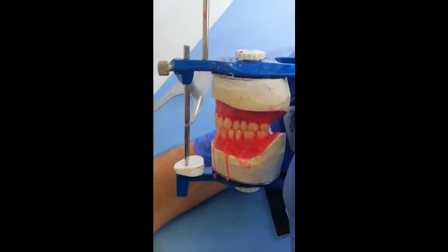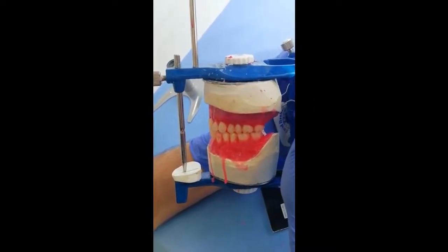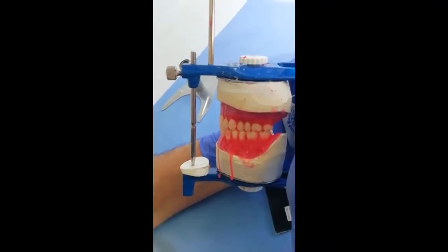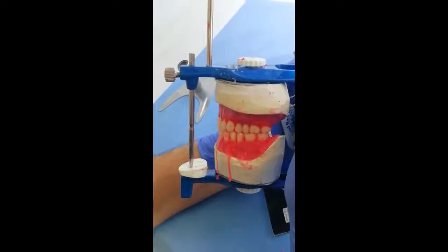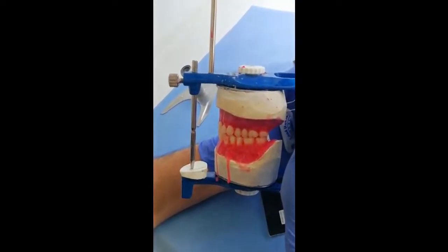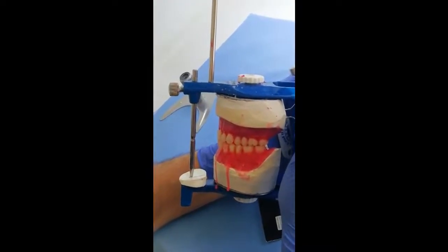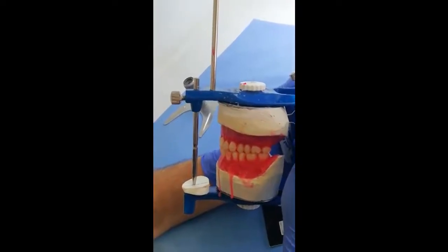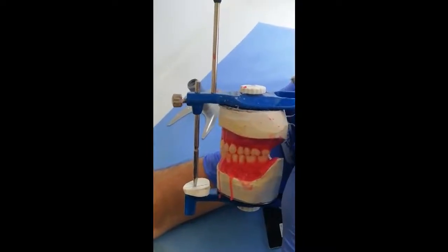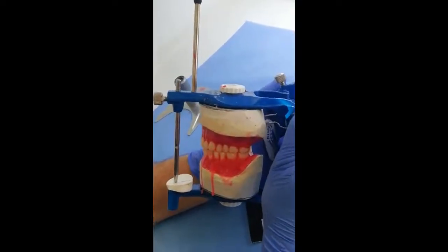We can notice that the pen is still contacting the incisal guidance table, and we have an edge-to-edge contact, and we have a balancing contact starting from the maxillary first premolar, maxillary second premolar. As you can see, the maxillary first molar and maxillary second molar. This is simply because we set the maxillary teeth in the correct position, and we gave the setting the proper anterior posterior compensating curve.